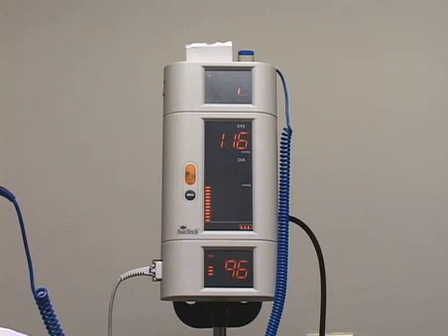The measurements can be started in any order, but by starting them in this order, they will finish at approximately the same time.